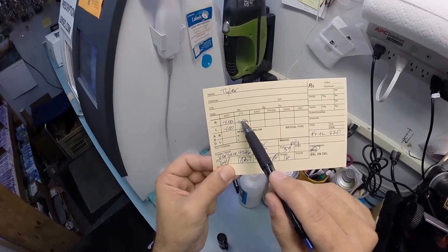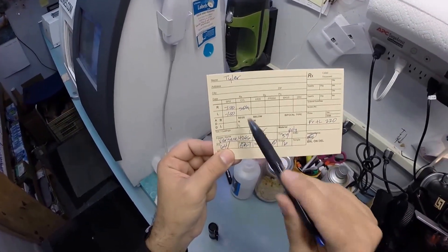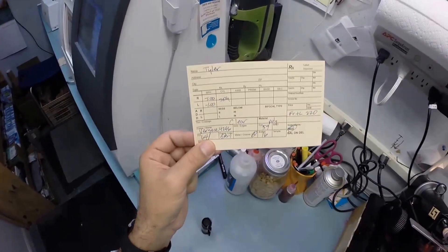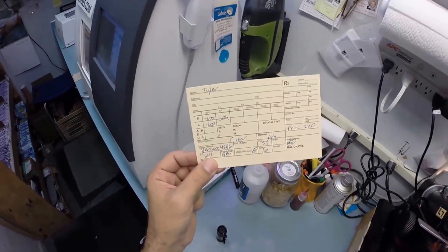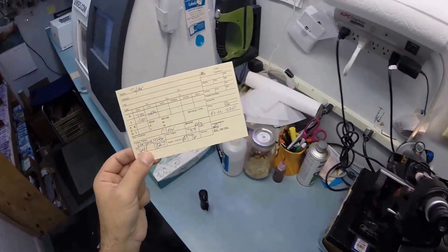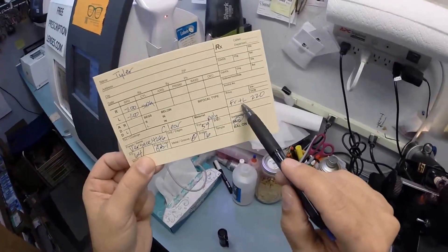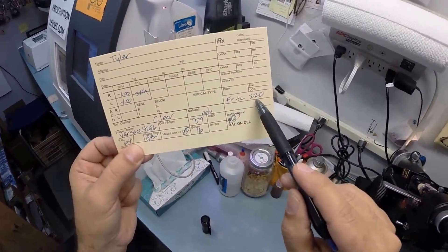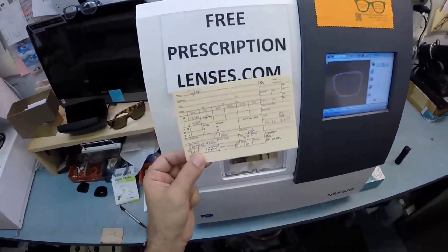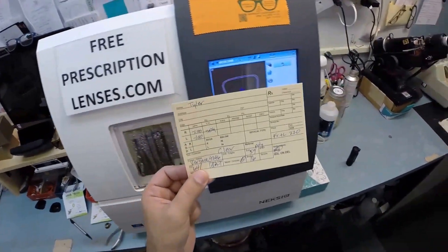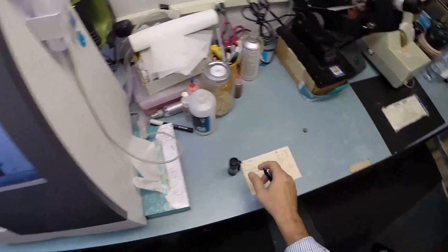You have no astigmatism correction, which is what makes everything a little blurry. I know it's blurry—you're saying it's blurry without my glasses—but things are just the wrong size. Astigmatism is the fine tune knob, which we don't have to worry about. Your frame sells for $220 and comes with one pair of clear free prescription lenses into the frame at no charge.